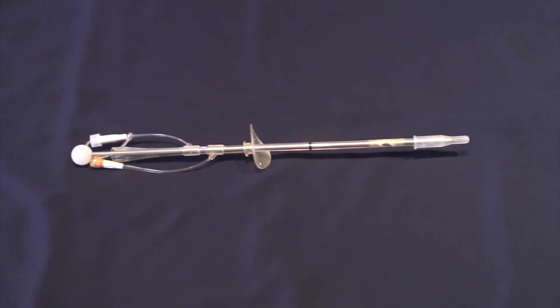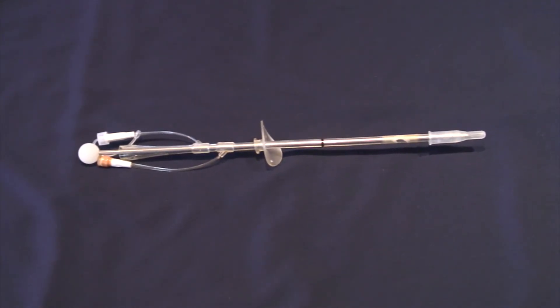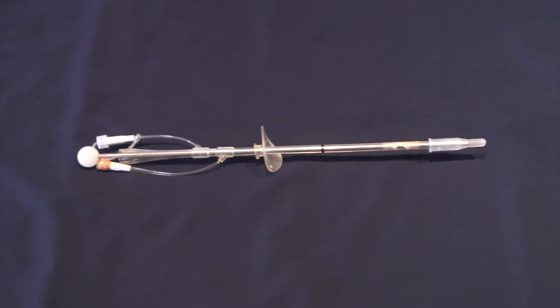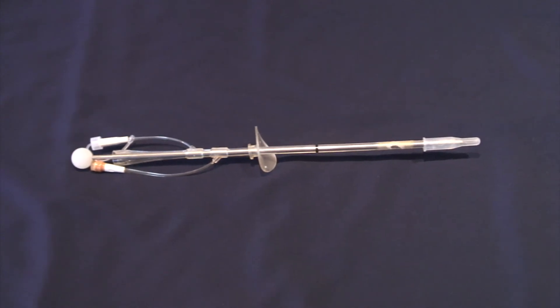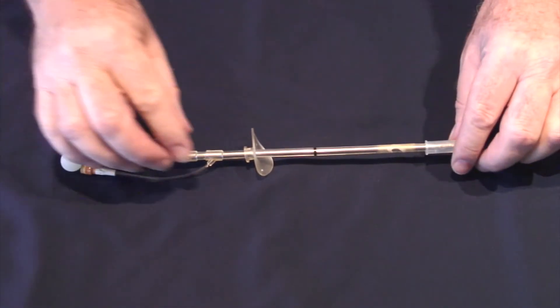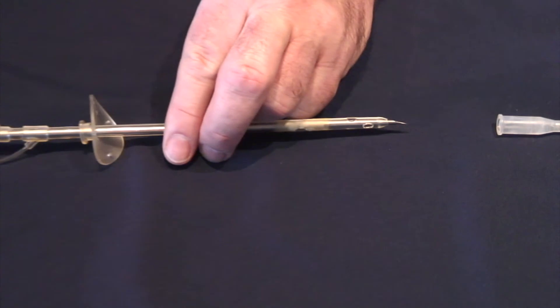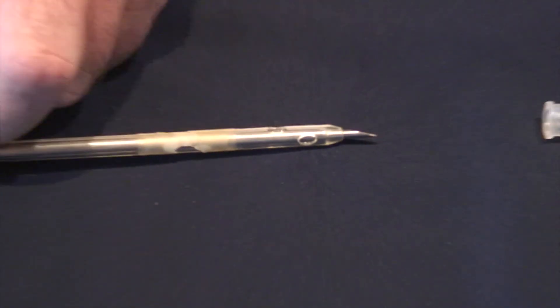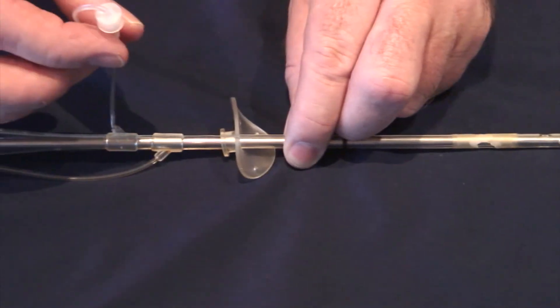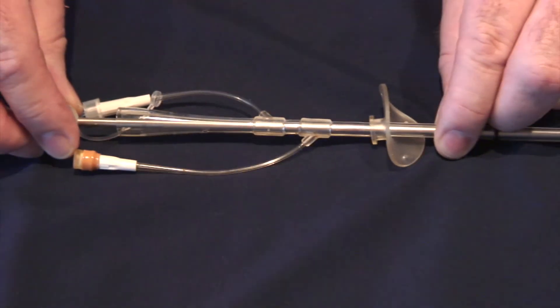This is one example of a suprapubic catheter. Suprapubic catheters are inserted through the lower abdominal wall approximately 2cm above the midpoint of the pubic symphysis. They are usually inserted when it is not possible to pass a urethral catheter, and sometimes used for permanent urinary drainage. This catheter has a sharp metal trocar which is inserted through a stab incision approximately 2cm above the pubic symphysis in the midline. It has an aspiration port for collecting urinary specimens and a balloon inflated using a needle and syringe. The balloons hold 5ml of water.